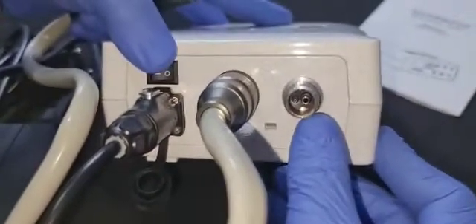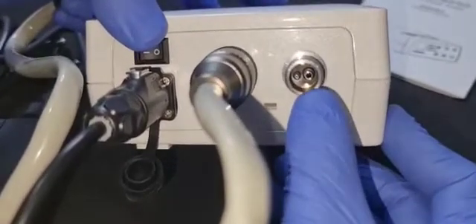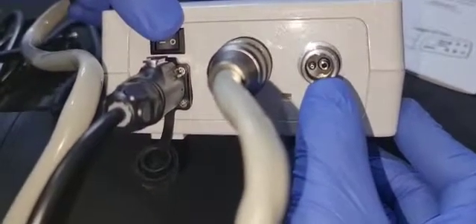So this is a chair air rotor coupling directly attached to this point where you attach the air rotor.